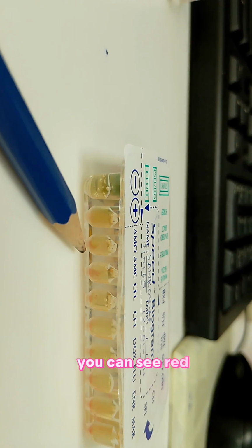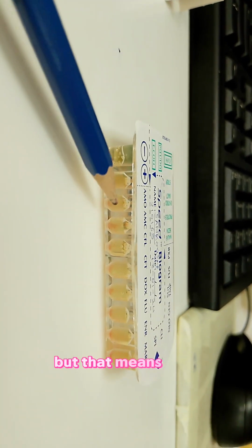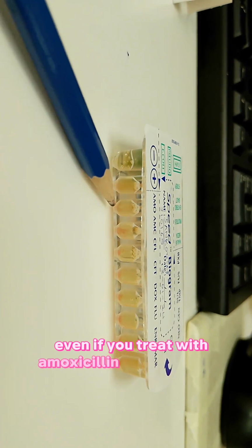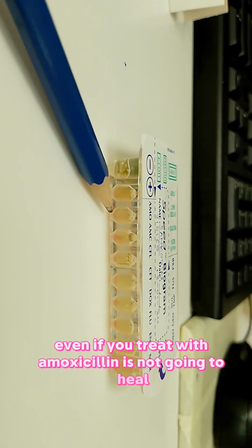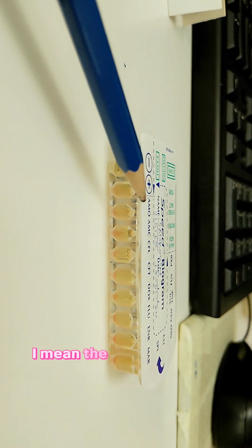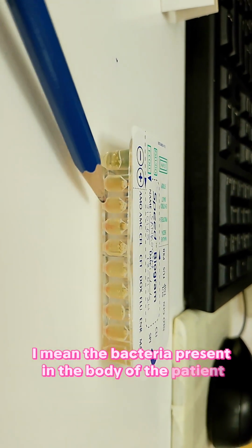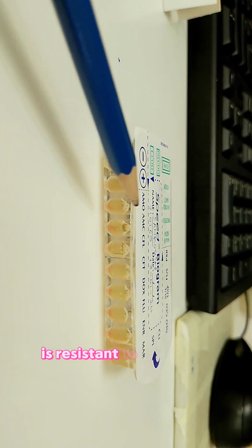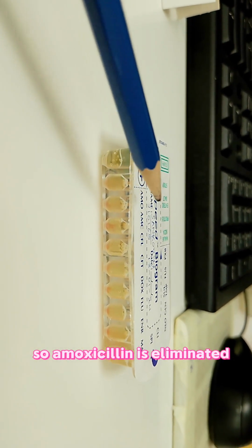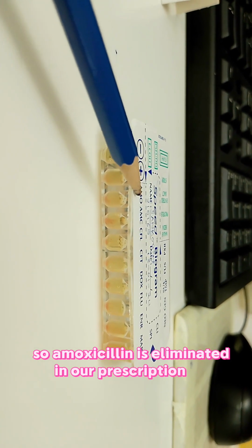That means even if you treat this patient with amoxicillin, the patient is not going to heal, because the bacteria present in the patient's body is resistant to amoxicillin. So amoxicillin is eliminated from our prescription list.